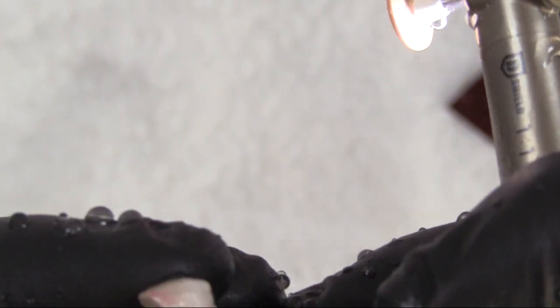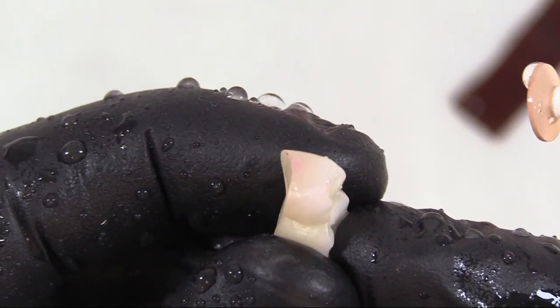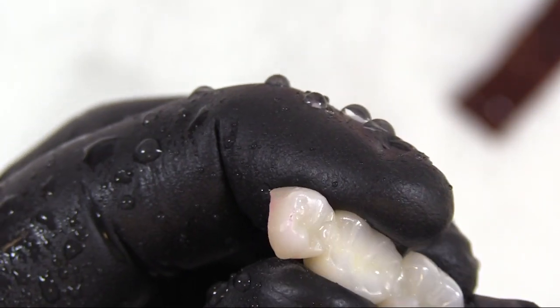Then you're going to finish off with the orange fine grit to keep that nice and smooth, not only for floss to not rip or tear, but also for bacterial adhesion to make sure the surface is nice and polished.